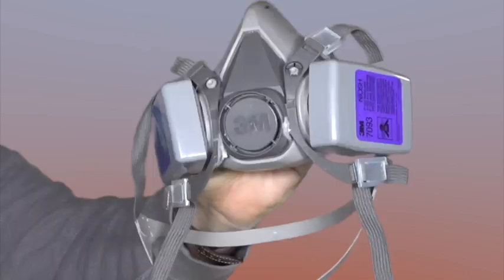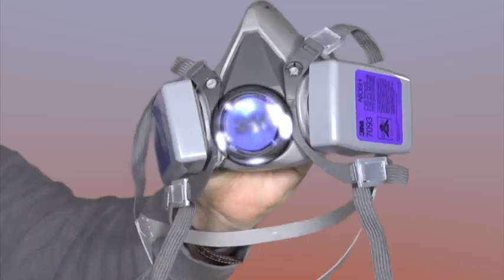And right here is the exhaust port. Now, normally we have to cover this with something like a surgical mask when we're at work because while it filters air coming in, it does not filter air going out. The exhaust port is an important landmark because this is where you want your microphone to be so that you get the best conduction of sound.